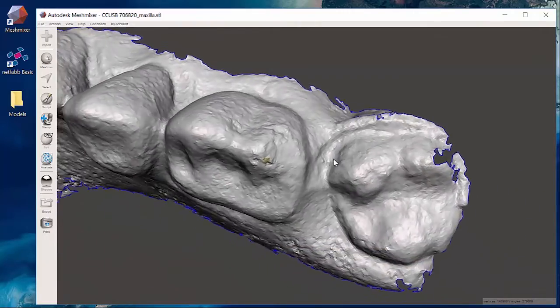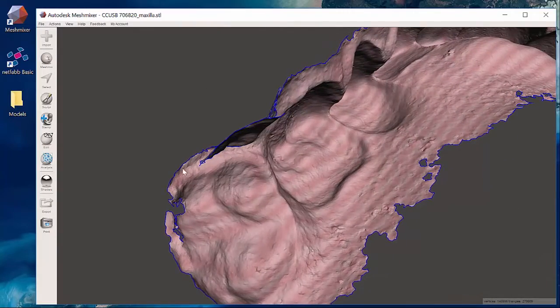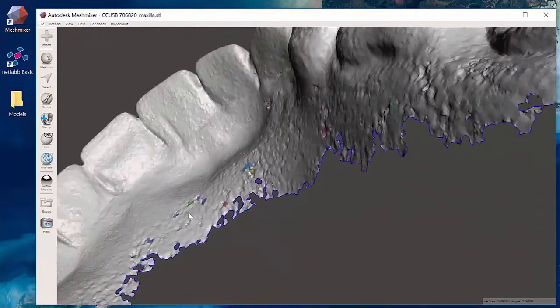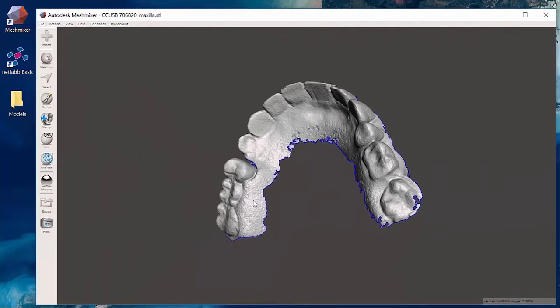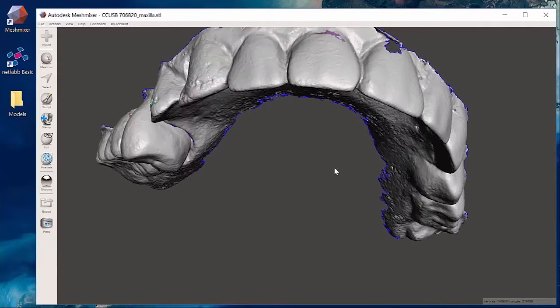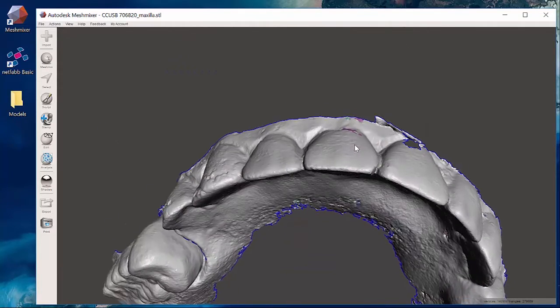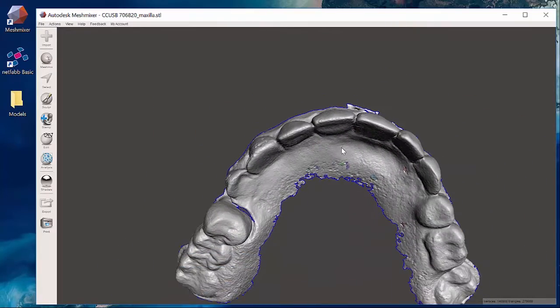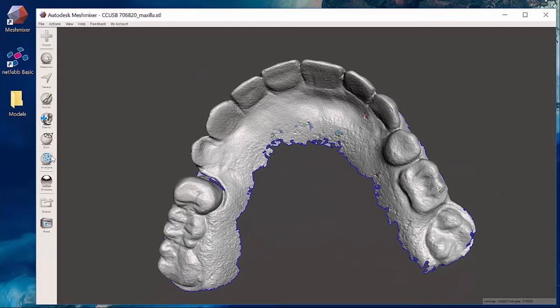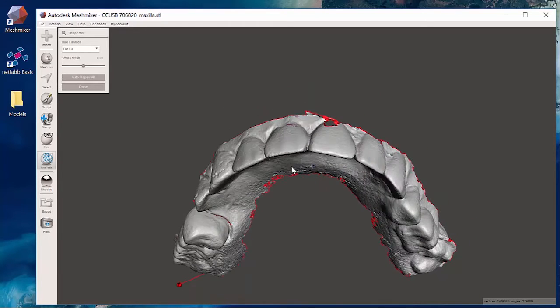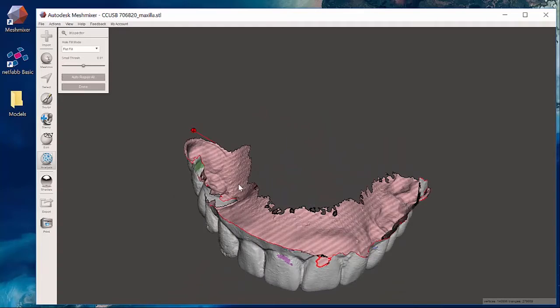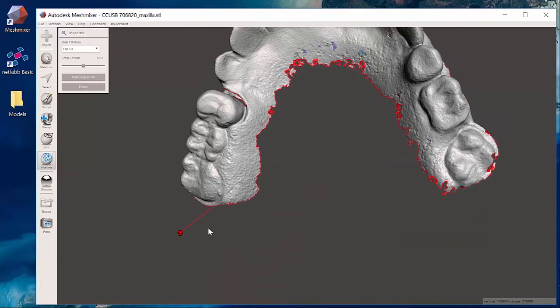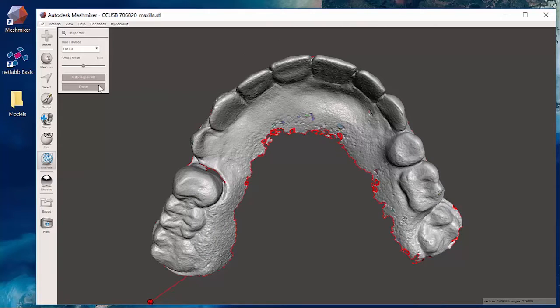As I slide across here maybe I want to clear out a little bit of this occlusal surface or maybe not. Now it looks pretty clean looking across everywhere. What I'm going to do is just verify everything looks nice. I'm going to run my inspector button one more time, analysis inspector. Verify that I just have that one orb or the one balloon. I don't want to touch that one at all so it'll fill in like the NetFab does.